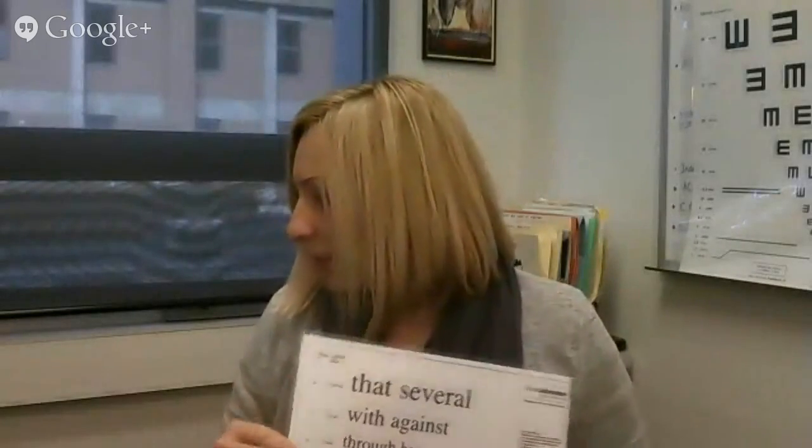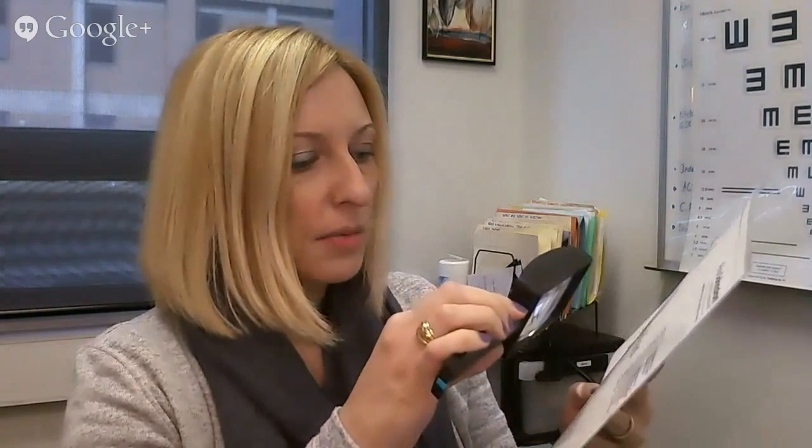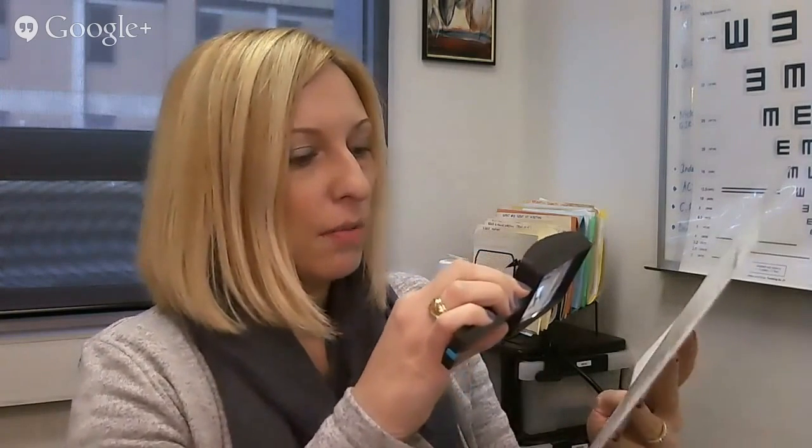I'm going to run through some typical magnifiers you can use with your patients. Starting with a simple handheld magnifier — this is a three times hand magnifier. It has quite a wide field of view because it's not very strong. To use it, place the magnifier flat on the page then bring it towards you until it comes into focus — that's your working distance. That's how hand magnifiers work; you move the magnifier over the page.